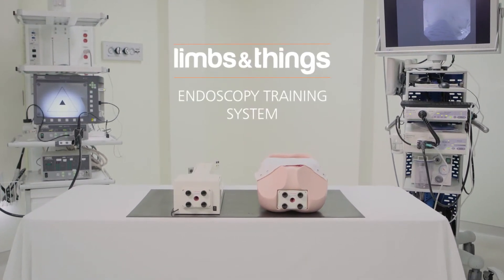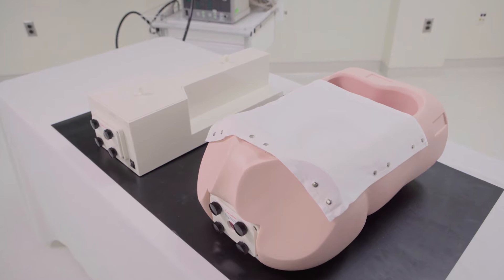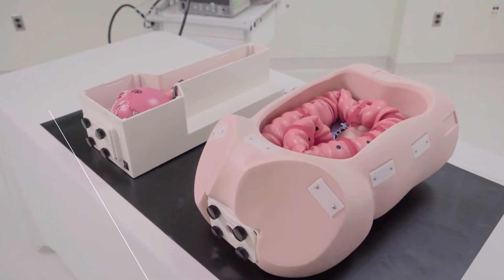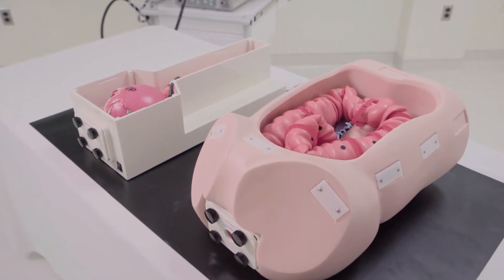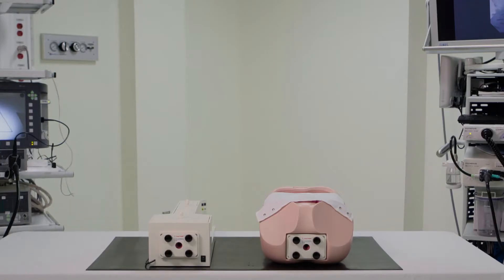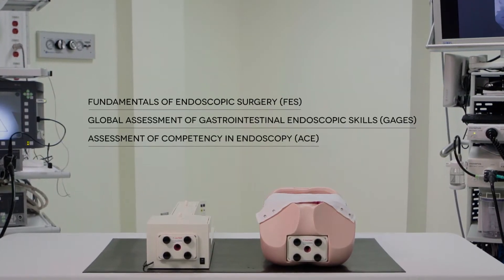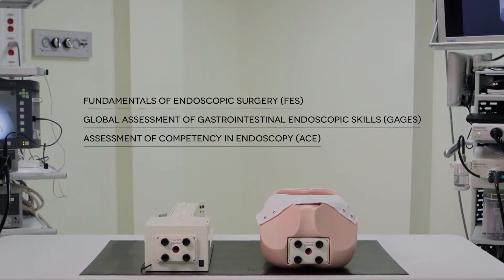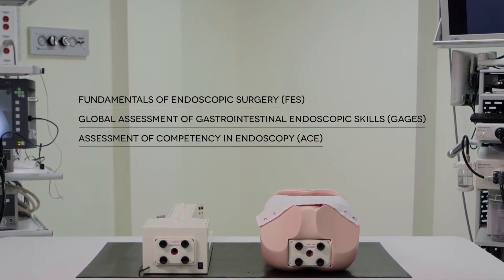This is the Endoscopy Training System, designed to develop the skills required for the safe performance of flexible gastrointestinal endoscopy. It improves performance of endoscopic procedures as measured by the National Assessment Programs.